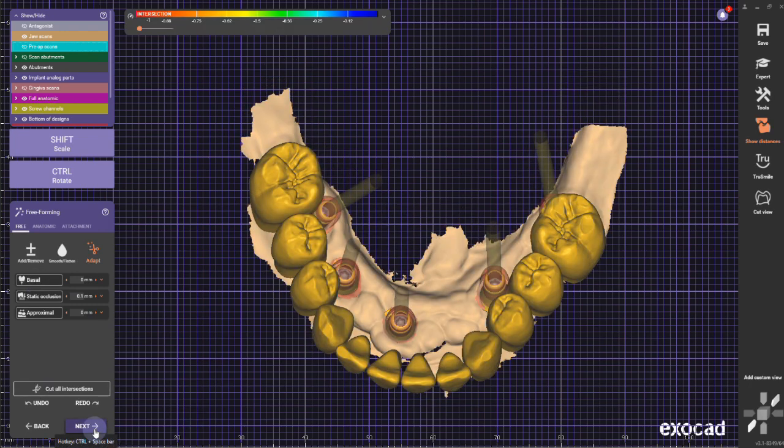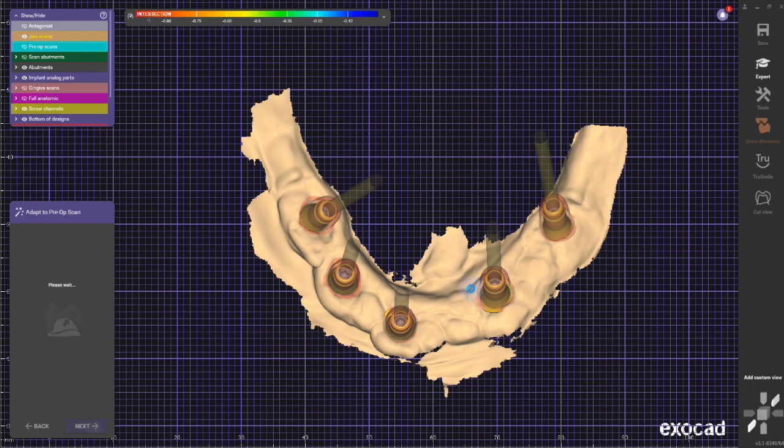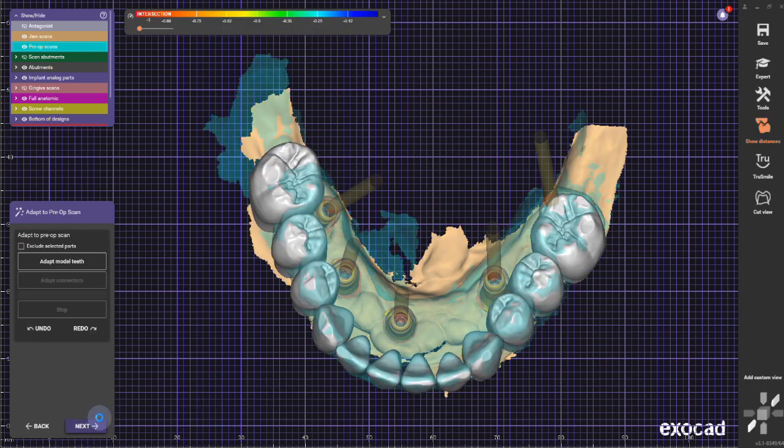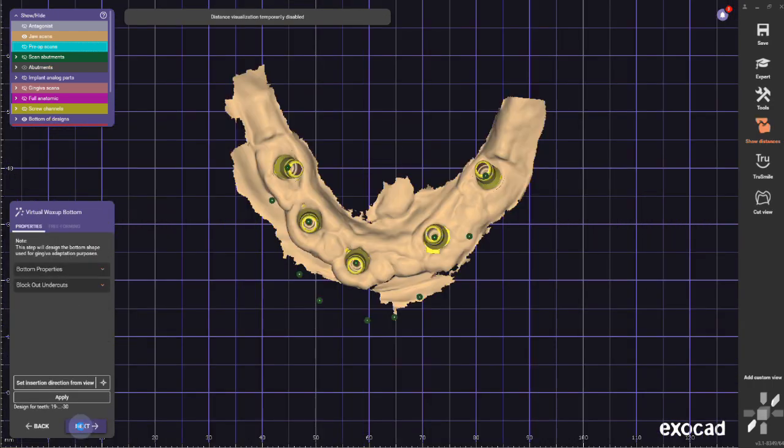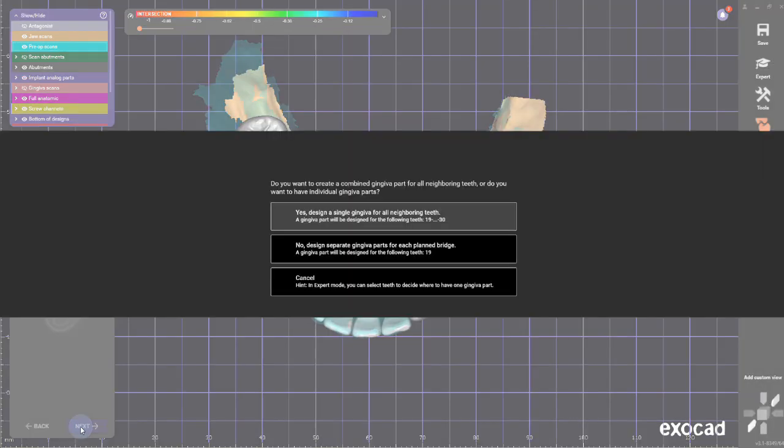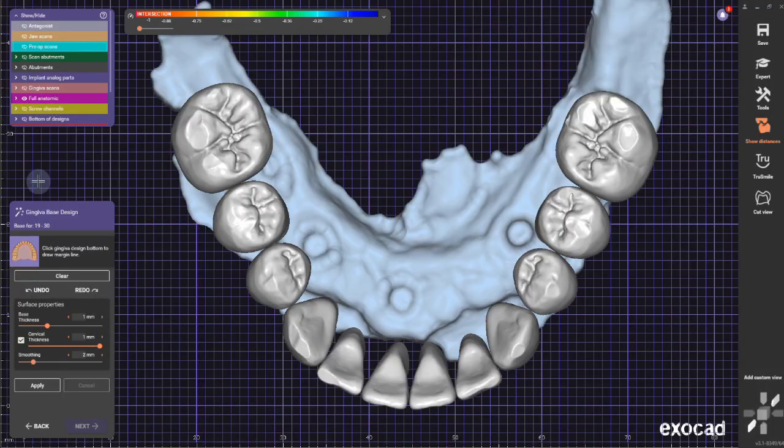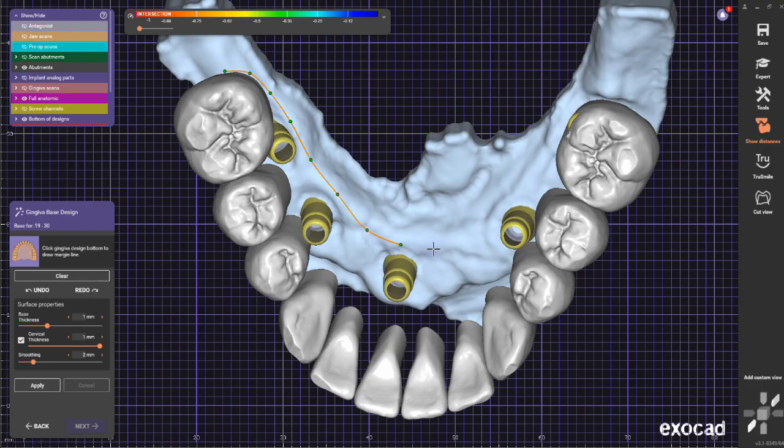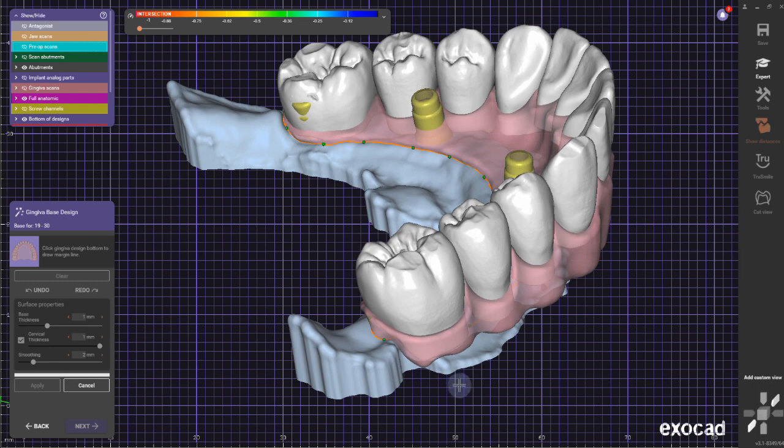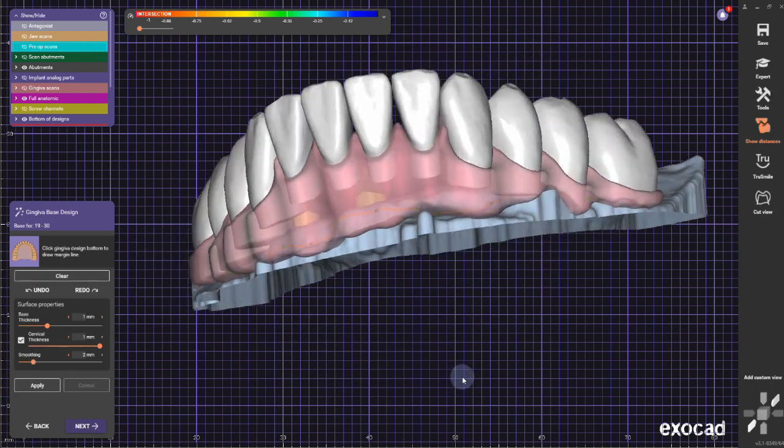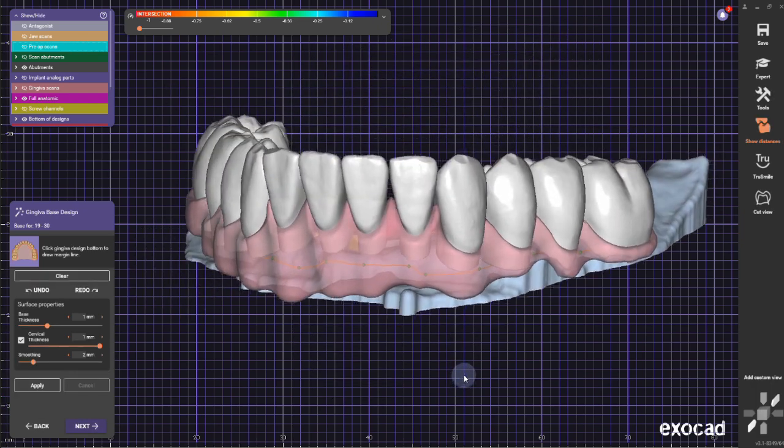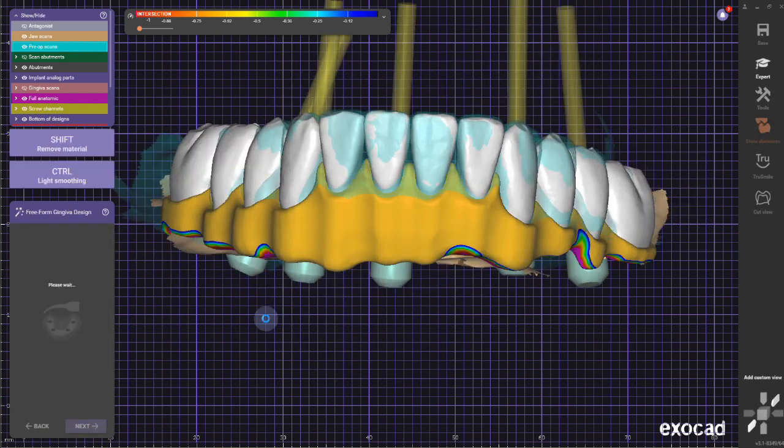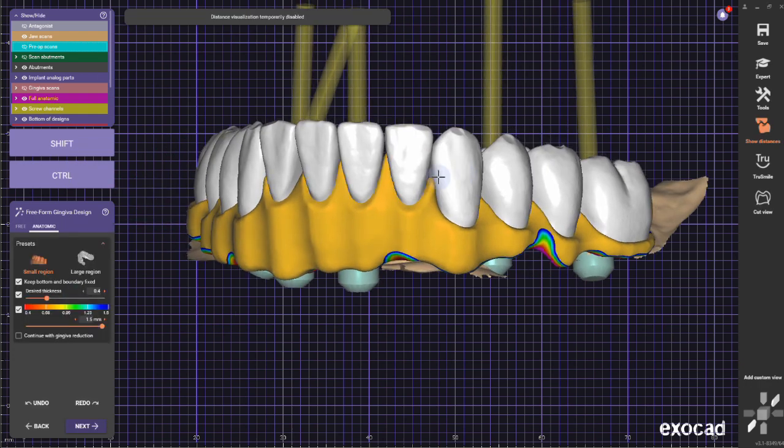After that, I can prepare everything to mark the outline of the tissue. In this step, I'm going to draw where my borders of the tissue are. I'm going to try to stay away a little bit, a millimeter or so from the actual abutment, so that the interface doesn't get too thin and the tie bases don't break out of the PMMA.